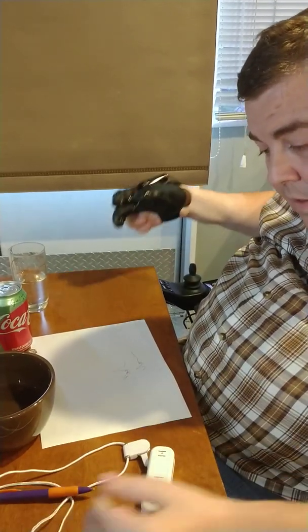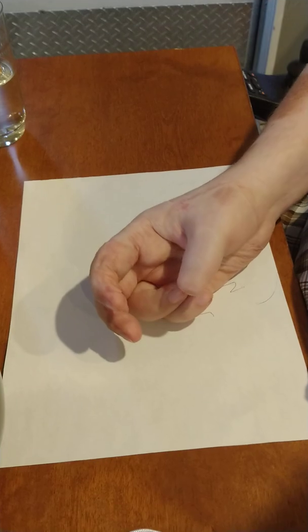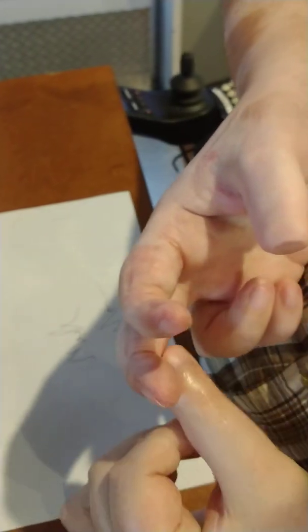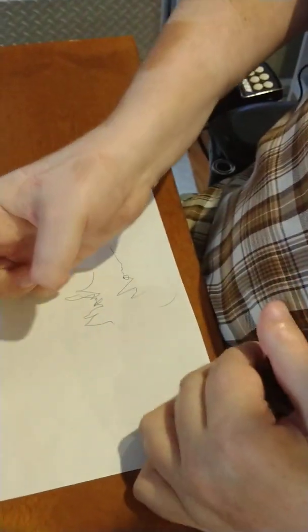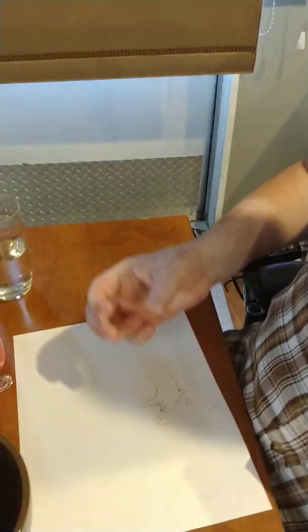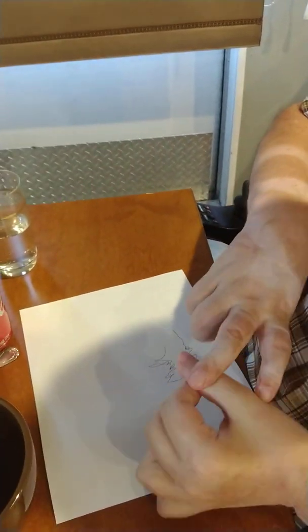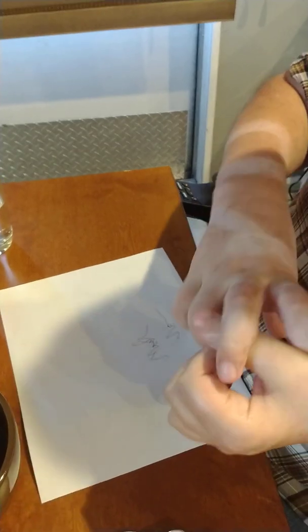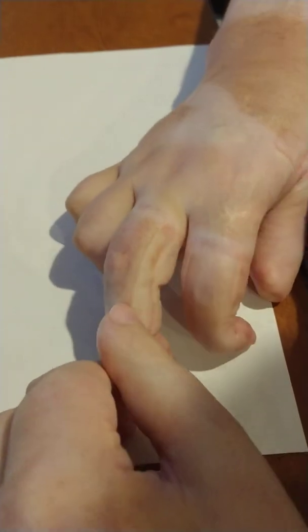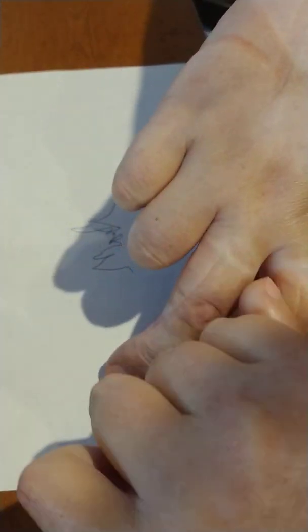As I took the Neo Mano off, I wanted to show you my fingers here. Kind of purple, lots of marks, marks on the side of the hand. Not to be unexpected, they're fading. I only had it on though for about 20 minutes. So if you're trying this for the first time, something to be very aware of. Those fingers are really tight on me. I think I need an extra extra large. You can actually see those marks right there down the side of my finger, kind of an odd colored mark.